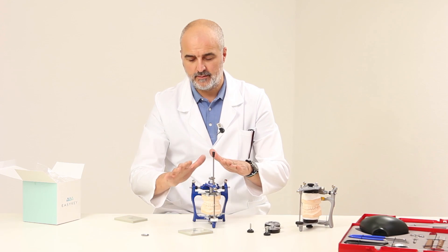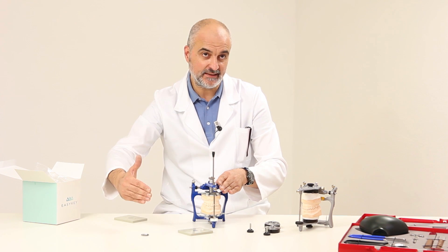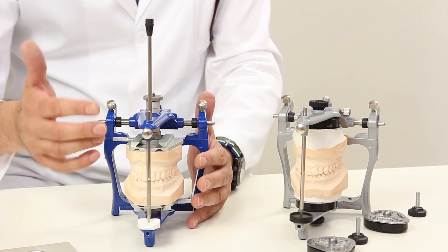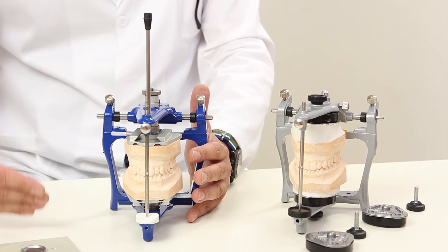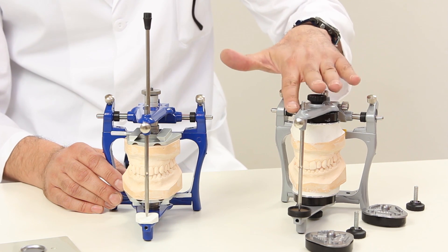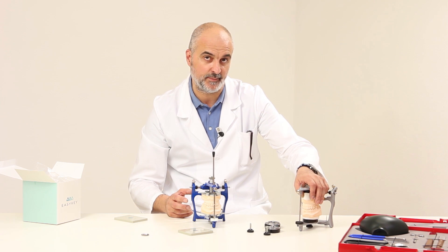Not all procedures, especially the most complex ones, are suitable for this system. This system is appropriate for everyday operations, to improve the quality of tasks where the articulator isn't usually used due to lack of time, and small tasks. This system works rapidly and improves the quality of the product. Plaster remains the best choice for consistent restorations since it always ensures repeatable stability.